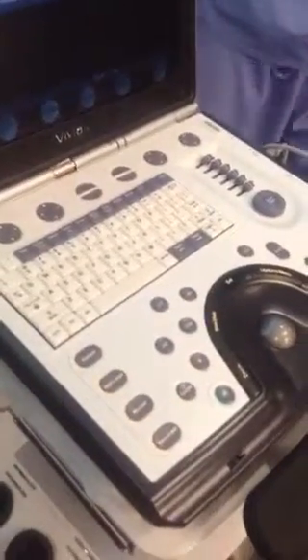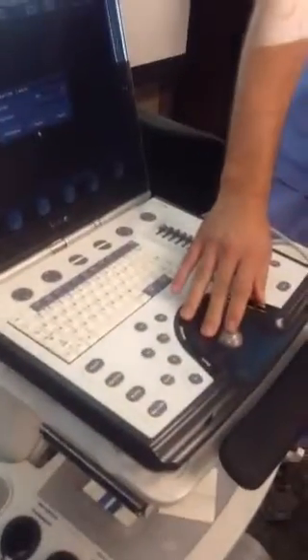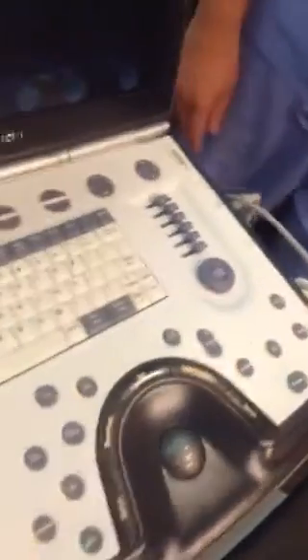It's your turn, Danny. Now it's going to ask us to log in. There really is no login here, so you just have to find the log on button. And the set button is going to be the button that you're going to push. That's kind of like your enter button. So if somebody wants to put in set, that's going to log you on.